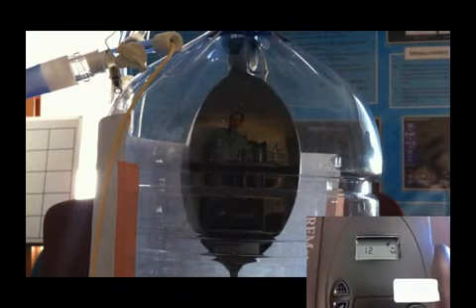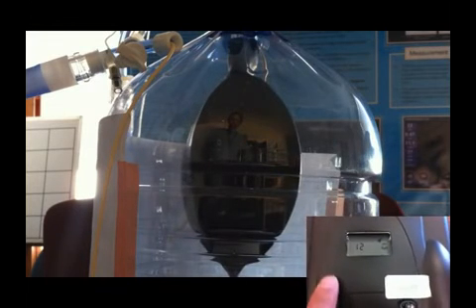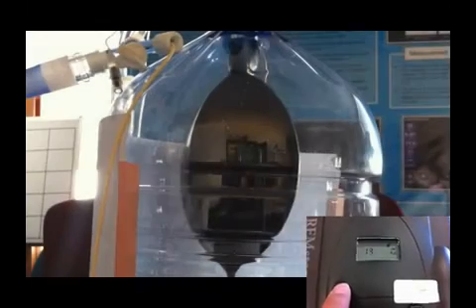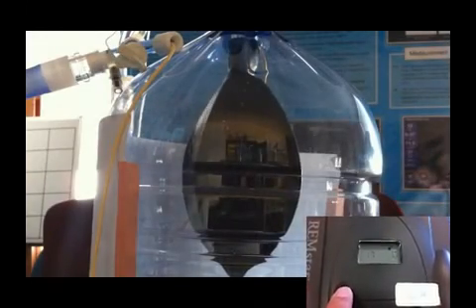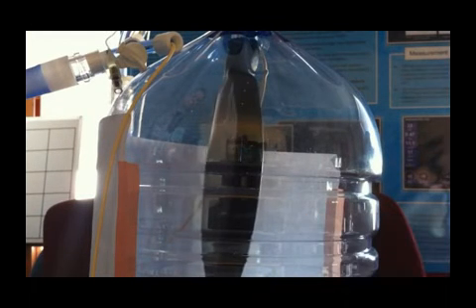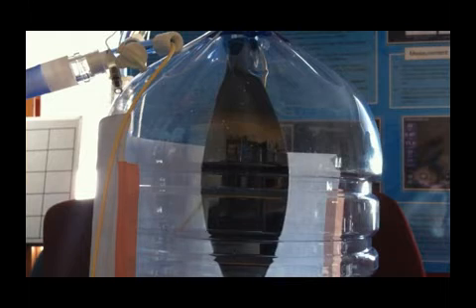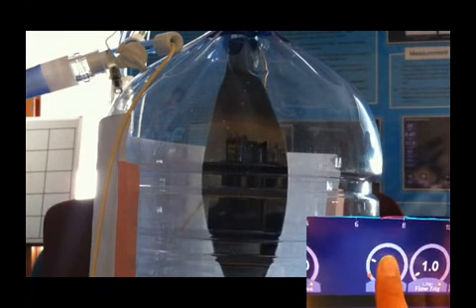I will now increase the pressure outside of the lung to 20 cm of water. Notice again how quickly the lung collapses at end of exhalation. Currently, the pressure inside my lung is 12 cm of water, which is my PEEP level, and the pressure outside is 20.